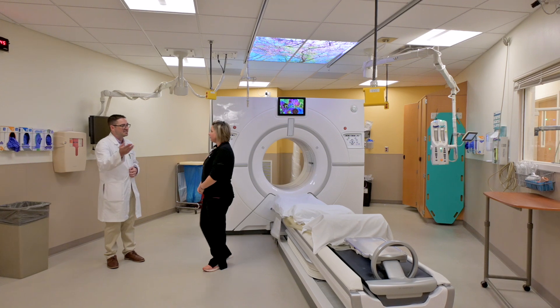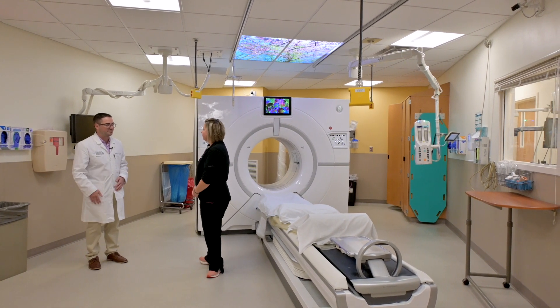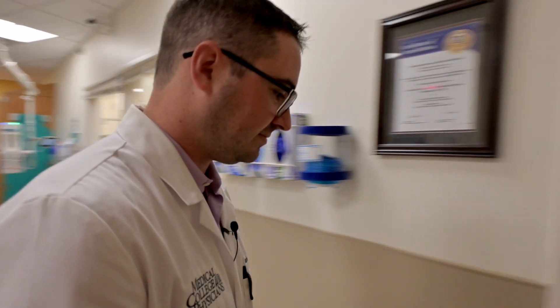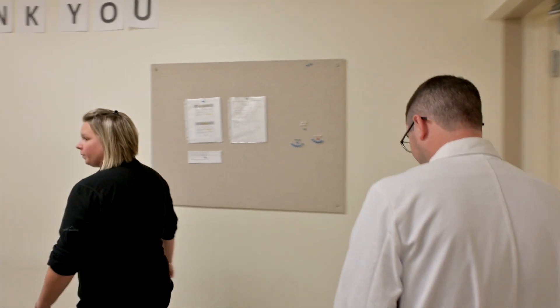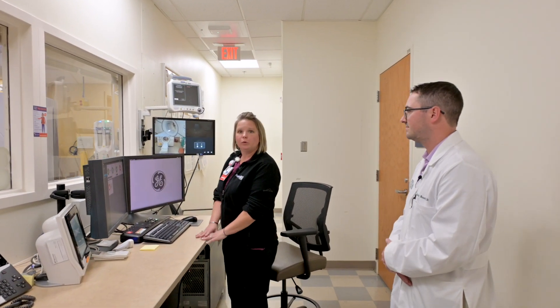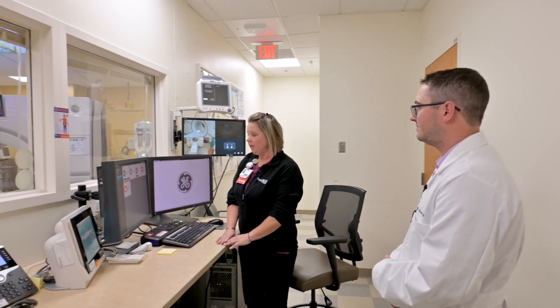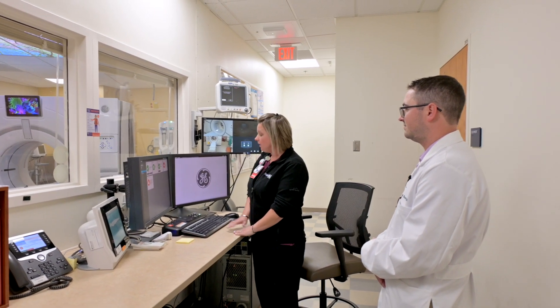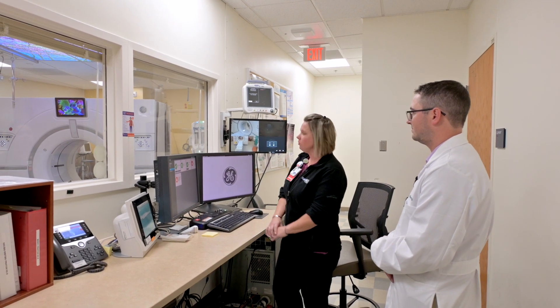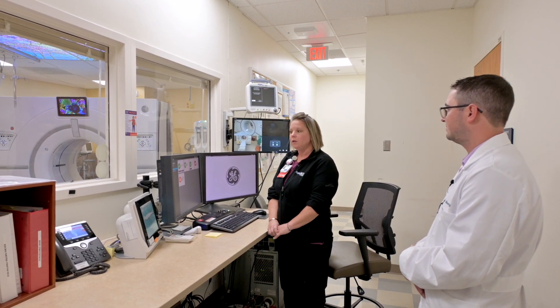So Kathy, I'll follow you into the technologist room so you can show us how things look from your perspective. Back here we have our console with two monitors where we pull up our patients. One thing to note is that we're able to hear, see, and speak to our patients through this console. We also have monitors set up so we can watch the scanning room. One thing we forgot to mention is the potential implications of using contrast in our patients.